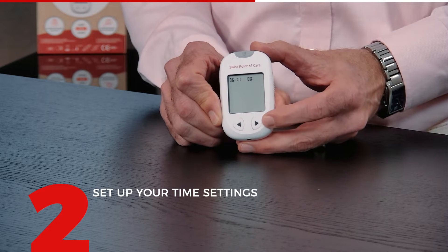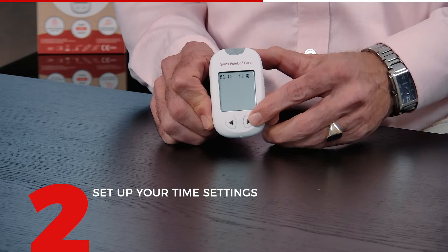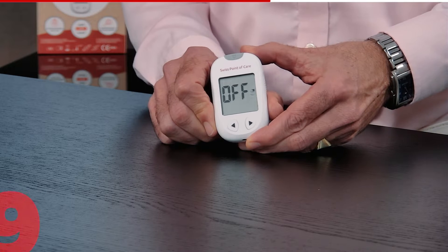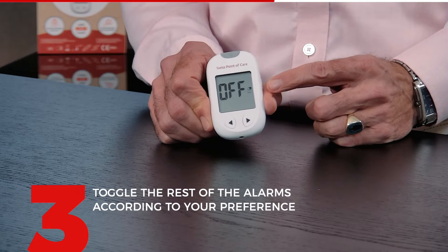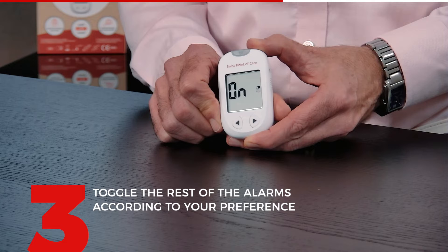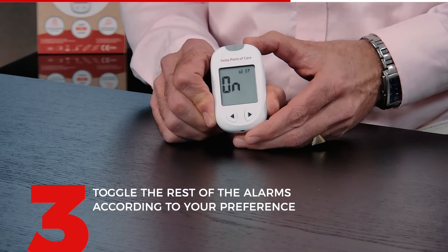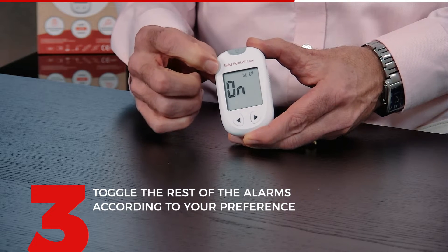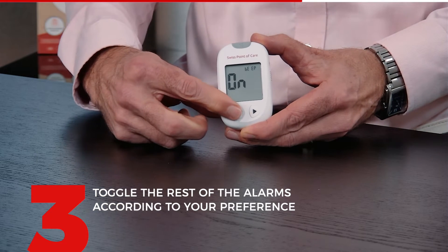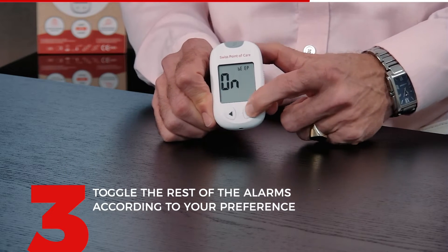Now you choose the time — it's 2 o'clock in the afternoon, and now the minutes, 10 minutes past 2. Press on this side to confirm. The next thing is you can put a meal marker on. If you look carefully you will see a little sign that looks like a bread — right now it's off. I'm going to turn this on. What this will do is when you do your measurement you can tell if it's breakfast or lunch, or before or after. The next thing is do you want your glucose meter to beep when something happens. I like to keep it on, but if you want it off you press on the left. Press the right hand to confirm.